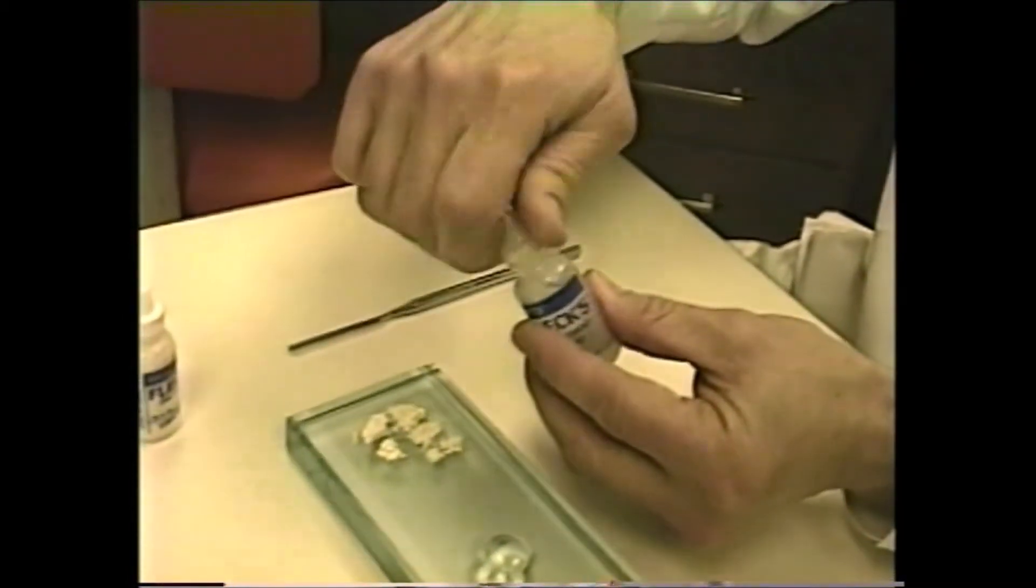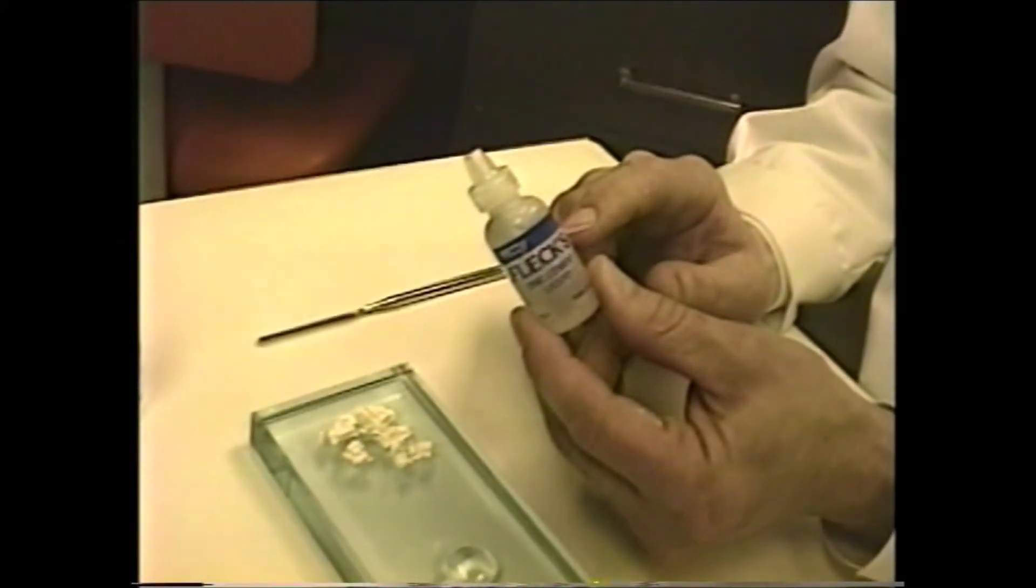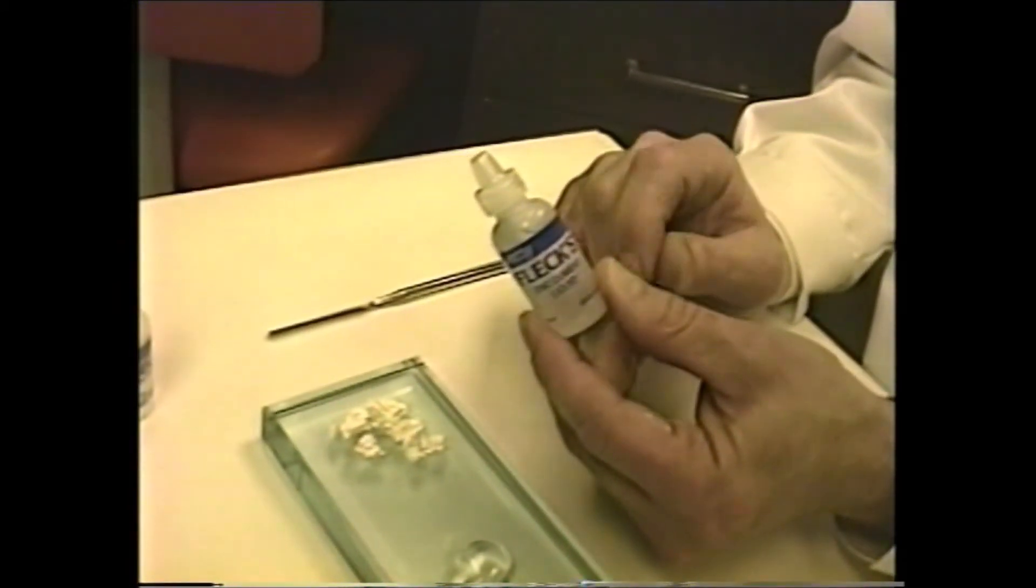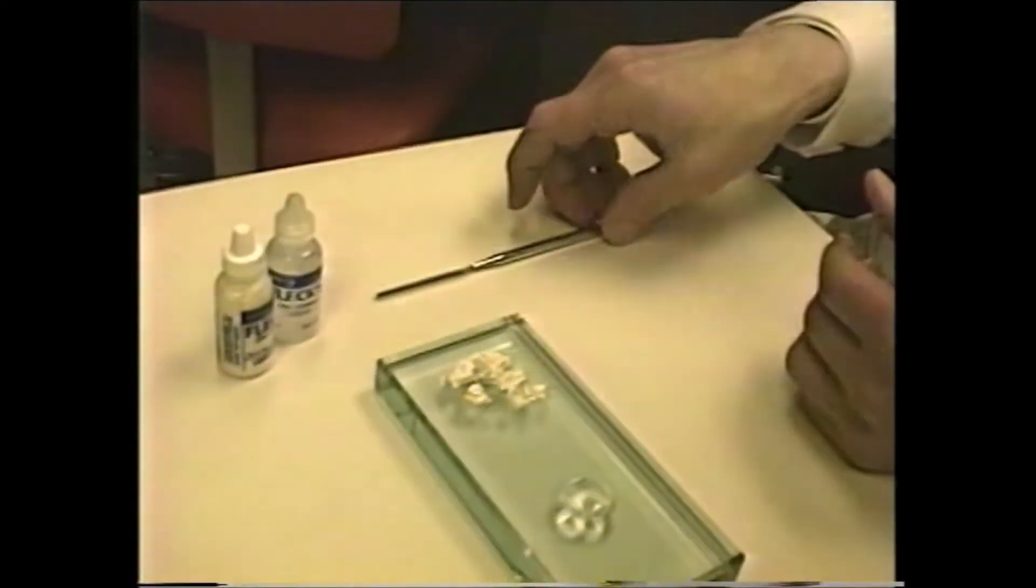Remember once again to replace the cap when you're using the liquids, because if water is lost here, it'll alter the setting characteristics of the phosphoric acid and the zinc phosphate mix.